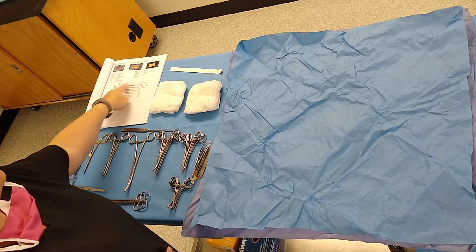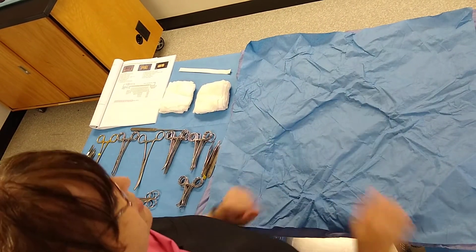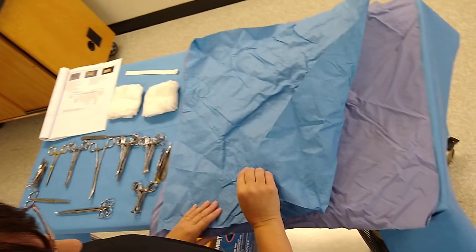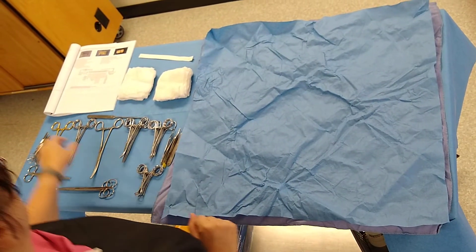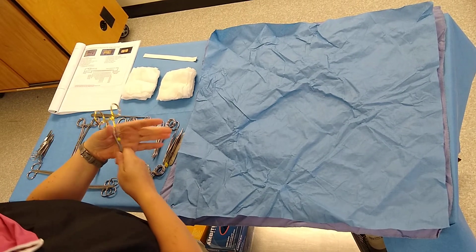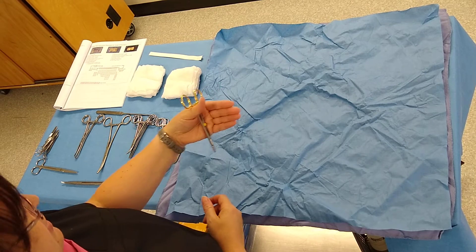Your book outlines how to place your instruments in your pack. Lay down your cloth wrap and your paper wrap, and then start to collect your instruments. Place them in your hand — you can either put your finger in here or just hook them to your hand like this.